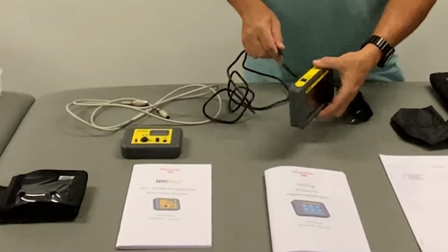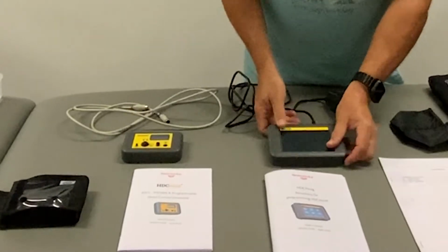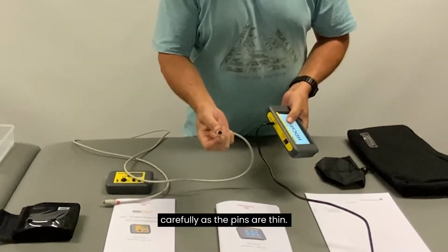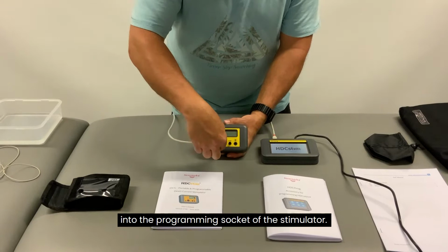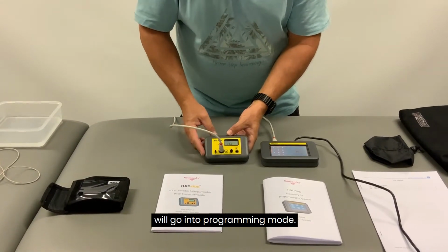To program the unit, you need to plug the 240-volt power plug into a source of power. Connect the PS2 cable carefully, as the pins are thin. The cable can only go in one way. Connect the other end of the cable into the programming socket of the stimulator. Turn on the stimulator and the unit will go into programming mode.